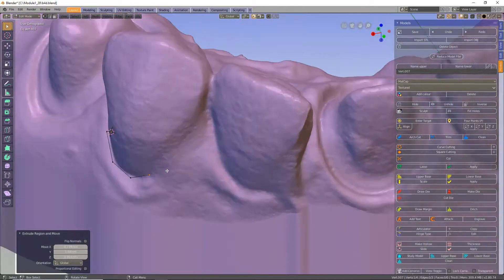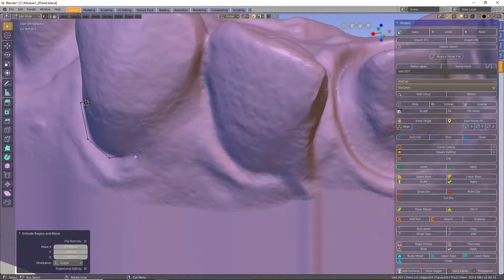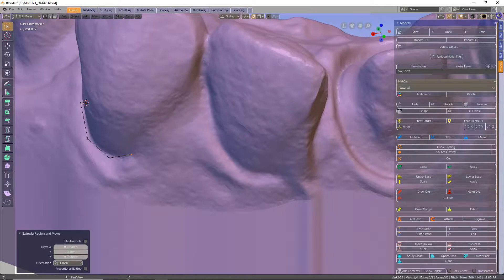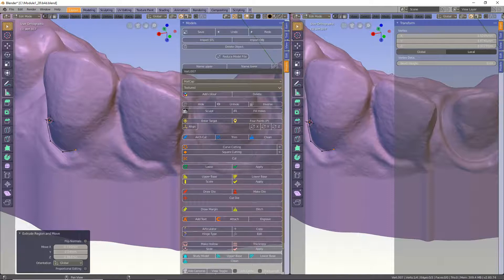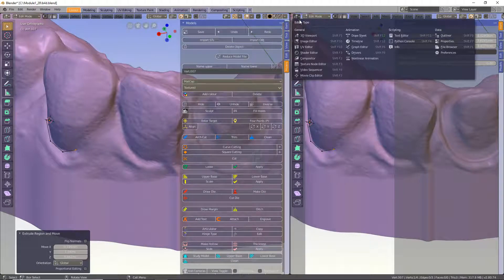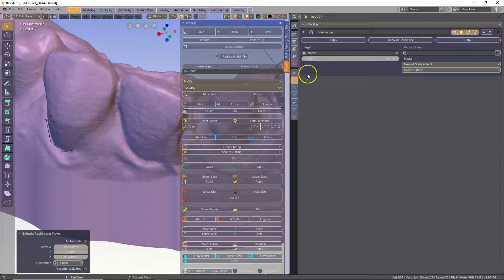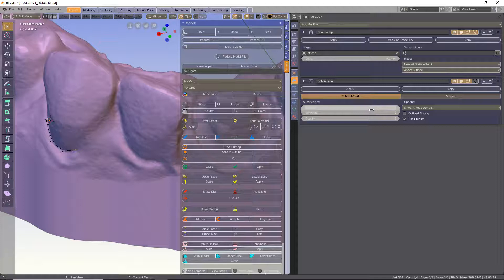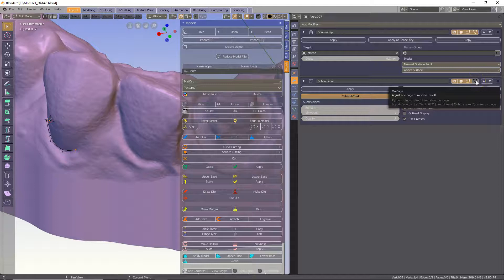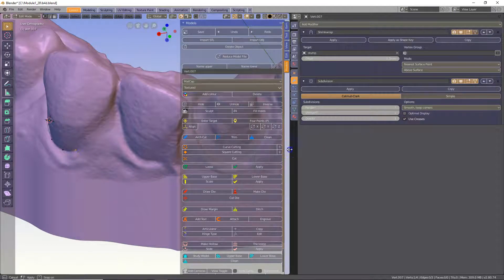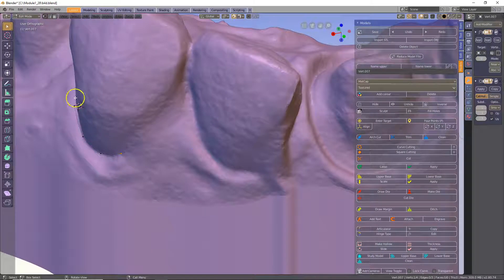You'll notice two things: one, the line has been offset, and two, it's very angular. To change this, go to the right hand corner until the cross appears, click and drag the mouse across to open a new window. Click on the drop down menu and click on properties, then navigate to the spanner. This is the modifier toolbox. There's a shrink wrap modifier there. We're going to add a subdivision surface modifier. Click on the icon on the right hand side so that we can make it visible in edit mode. Now drag the window closed a bit so we have more space. You will notice now that it's a curve and not an angular line.